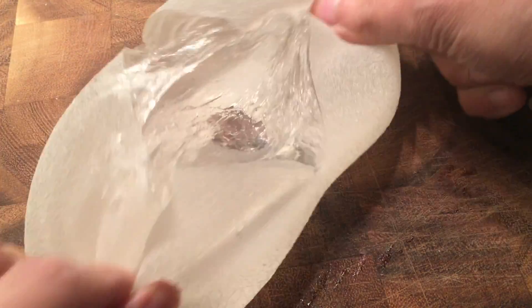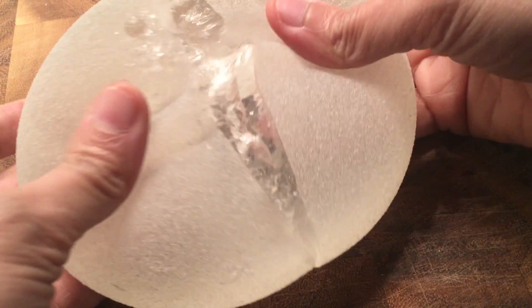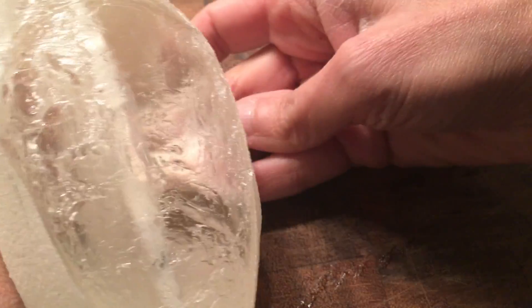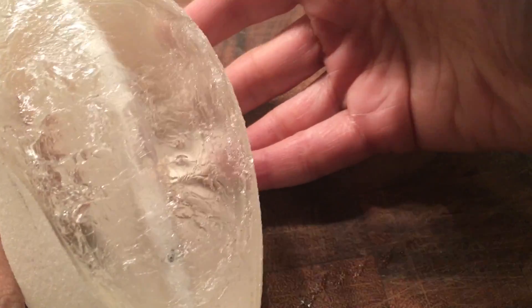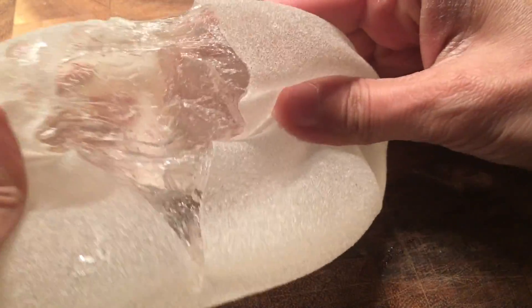And this one is much thicker. It has more of a consistent gummy bear shape. So it's actually got a fairly solid surface. And this is why they call it a gummy bear. It's not going to ooze out all over the place.